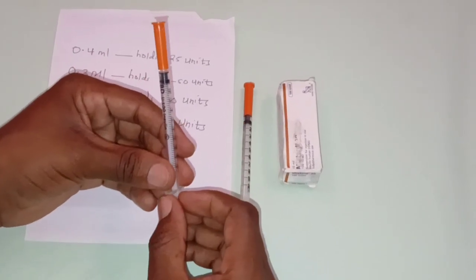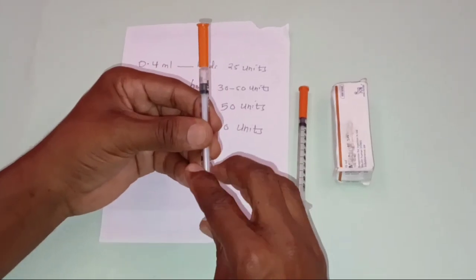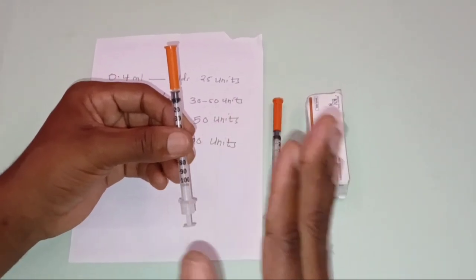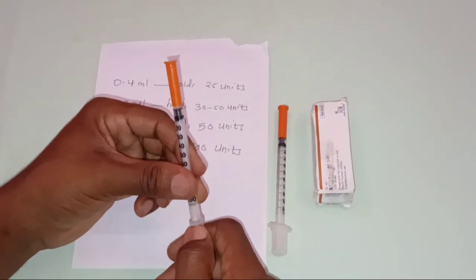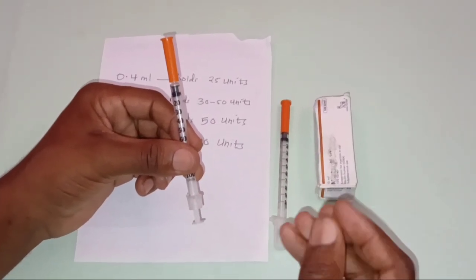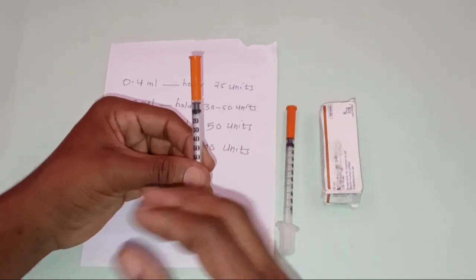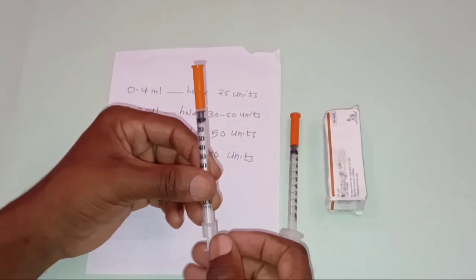You must also consider the patient's age and size. For instance, children will require a needle with a 31 gauge, that's around 4 to 5 millimeters in length. Secondly, adults who are slimmer will require a needle of gauge 28 or maybe 29 with 4 up to 6 millimeters of length.